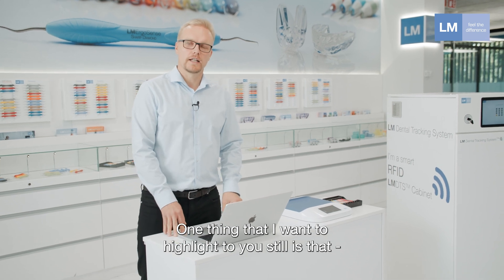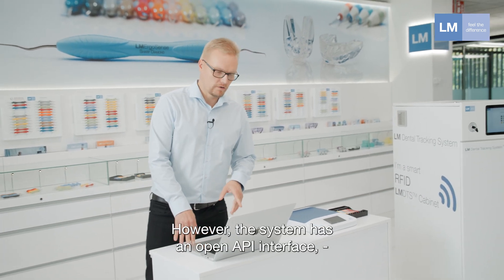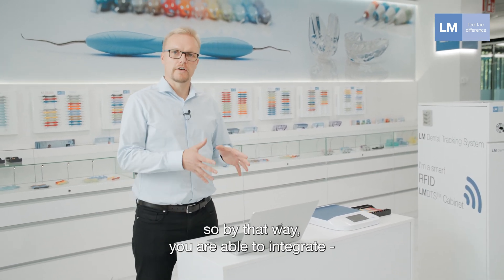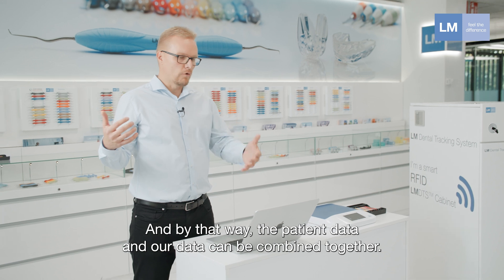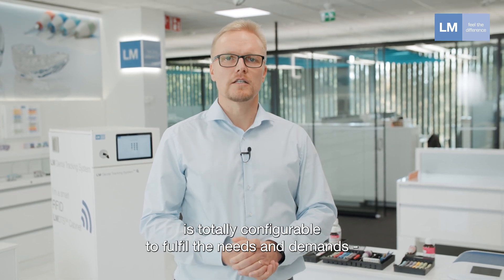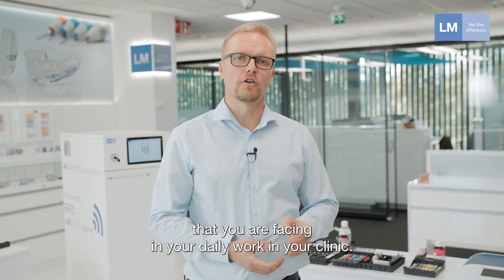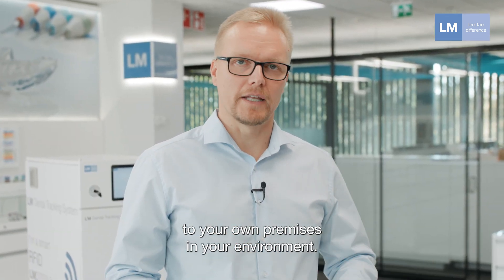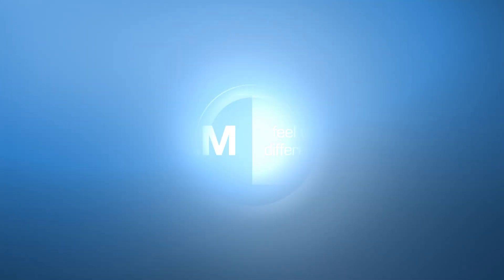One important thing to highlight is that our system does not collect any patient data. However, the system has an open API interface, so you can integrate our software with your own software and combine patient data with our data. Please keep in mind that our Dental Tracking System is fully configurable to meet the needs of your daily clinical work, and all processes can be tailored to your own premises and environment. For more information, please get in touch with us. Thank you.